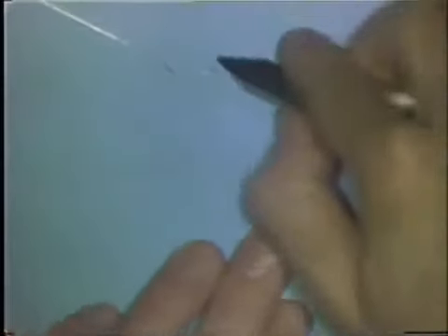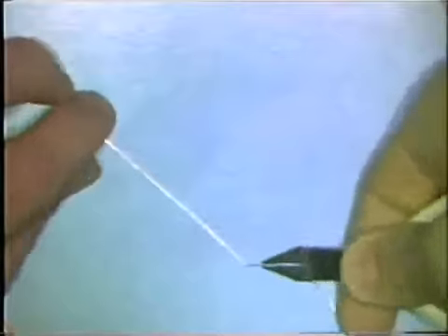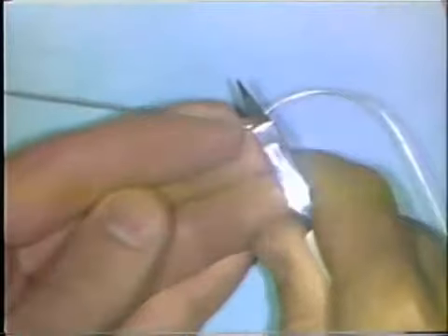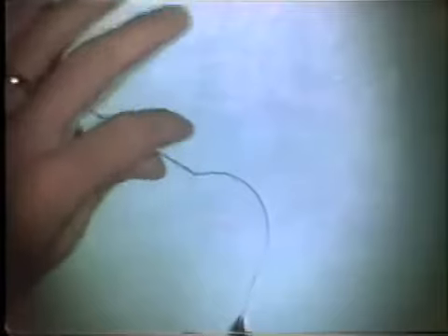You know that your curvature was flat before, and it leaves the table now at the point where you placed the last bend. This means that the lack of adaptation to the tabletop is due to this last bend. To correct this, you place the wire in the beaks of the plier and make a slight upward bend, then try it again on the table surface. Sometimes more than one upward or downward bend is needed, but now this leg of wire is in the same plane of space as the curvature.